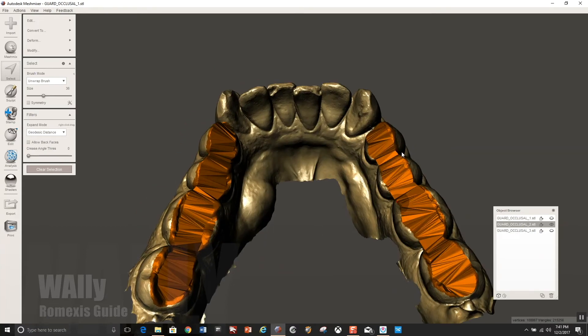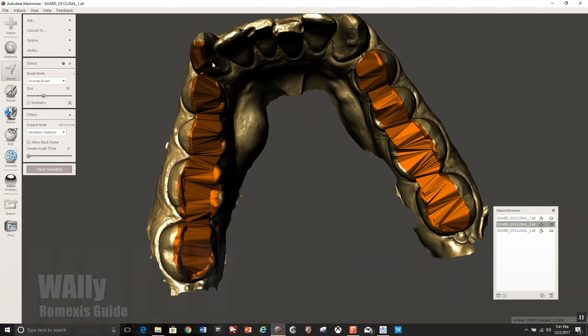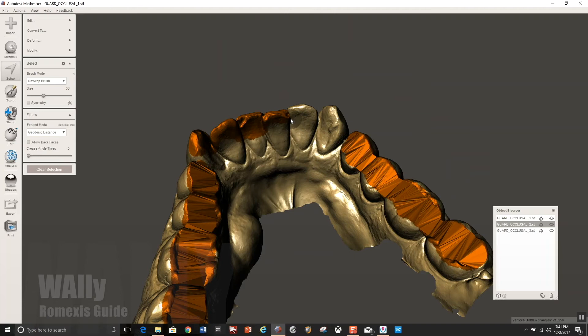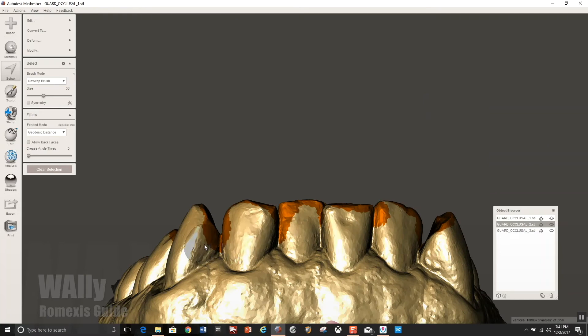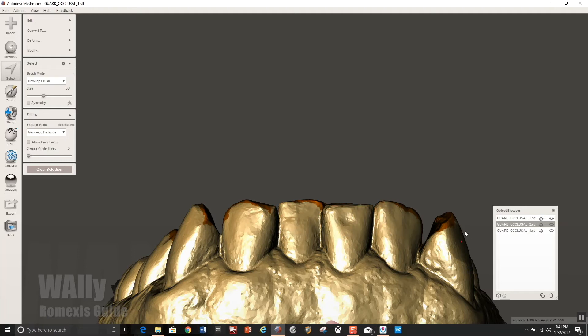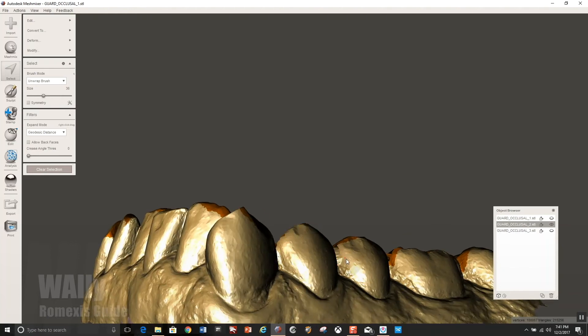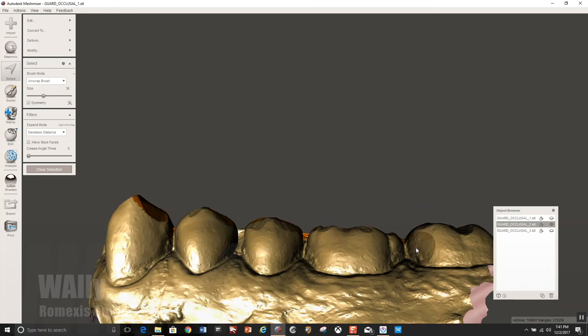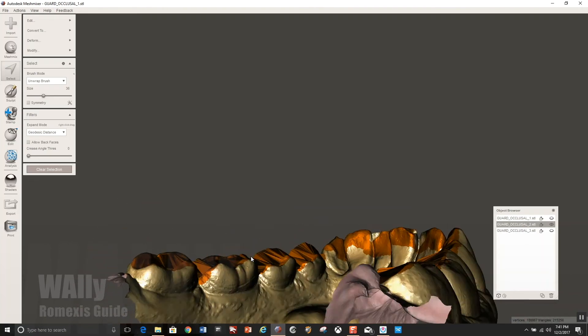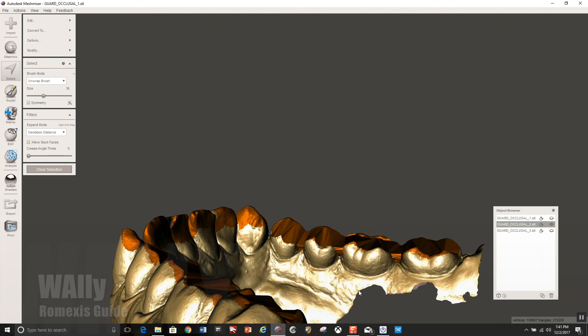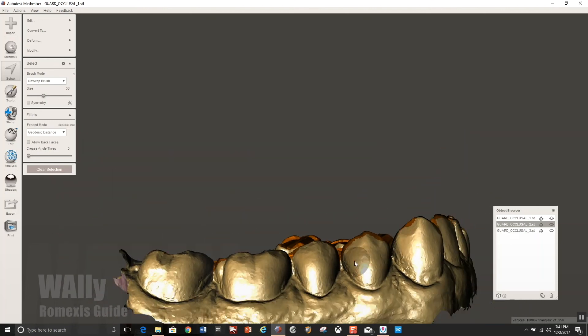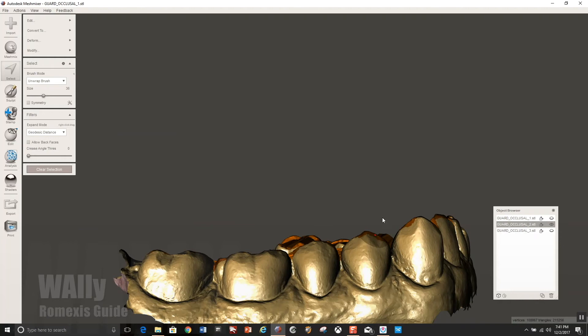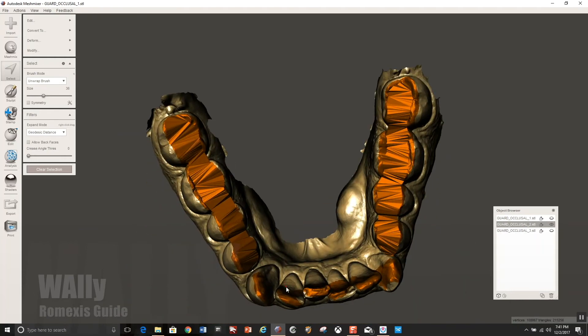And then same thing with the incisal edges of the anteriors, avoiding the facial surfaces here. So I'm just going to go and highlight the very incisal edge with a slight lingual bias. And then I'll rotate onto the facial and make sure control click and hold to remove a lot of the data that wrapped over onto the facial because you don't want to lock the patient in, want them to have freedom of movement. And so the indentations that I want, I want it to be subtle and just filling in now with still using the same tool, the select tool.